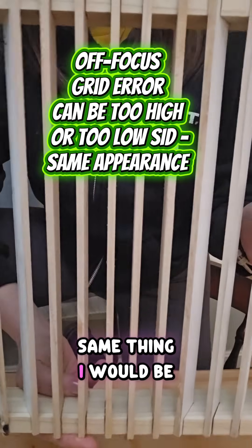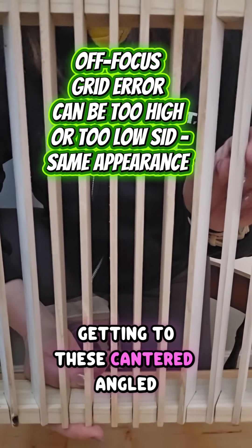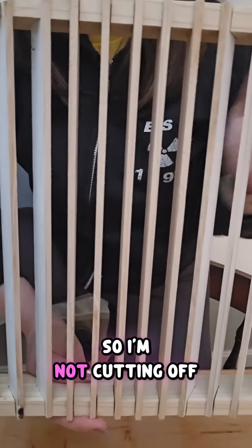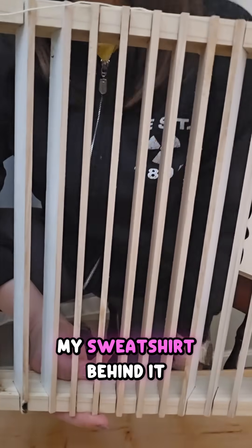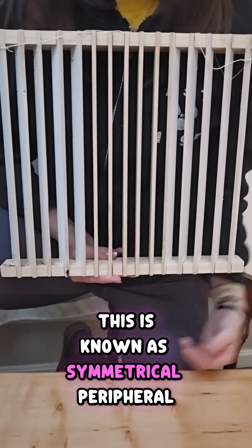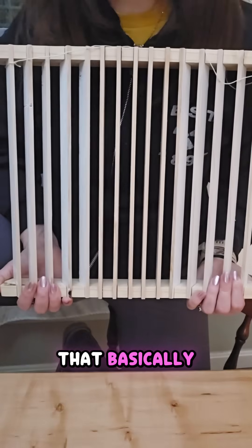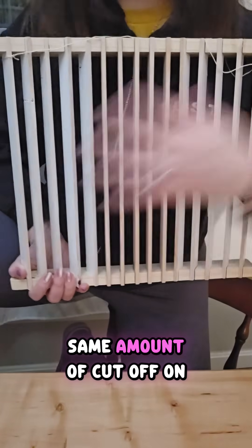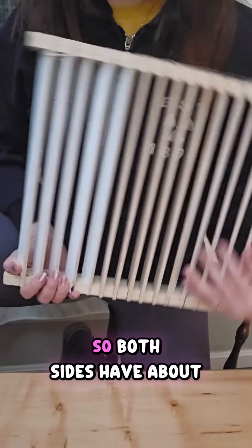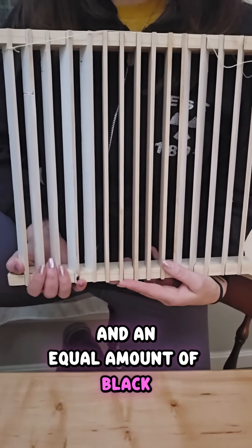I would be able to see fine and clear in the middle, but then as I start getting to these angled lead strips, I'm going to start getting some grid cutoff. So I'm not cutting off all of the black of my sweatshirt behind it, but I am definitely cutting off some. This is known as symmetrical peripheral cutoff — that basically just means I have the same amount of cutoff on both sides, with about an equal amount of white and black still going through.